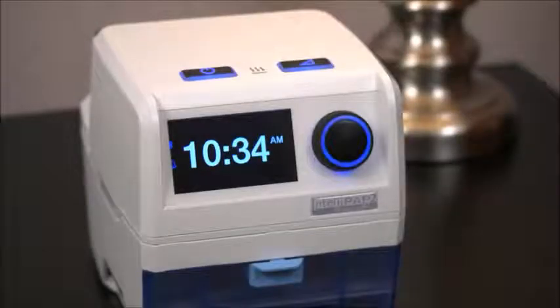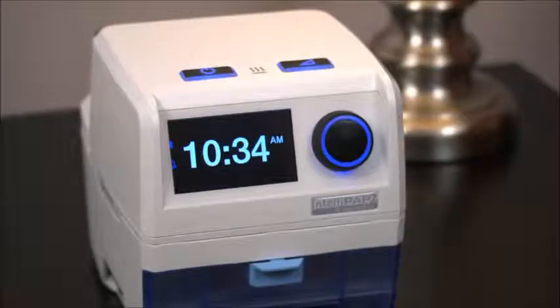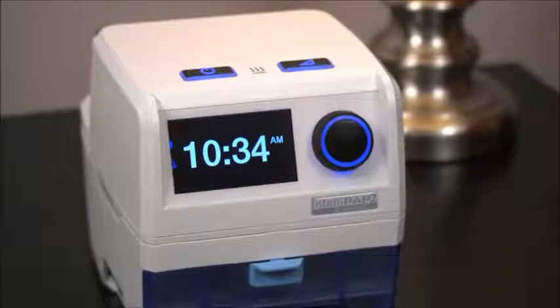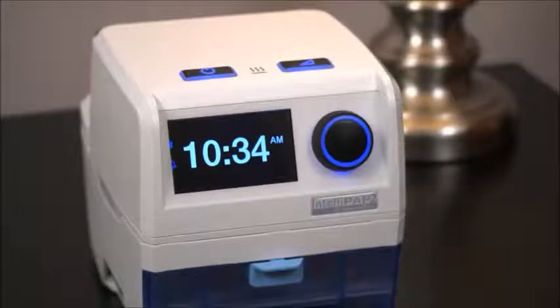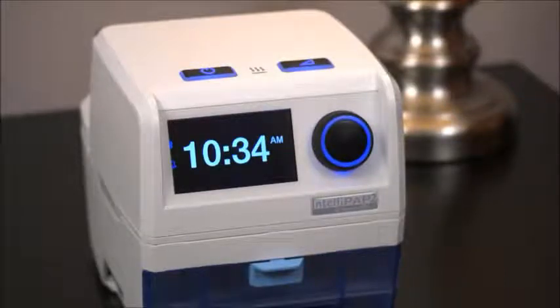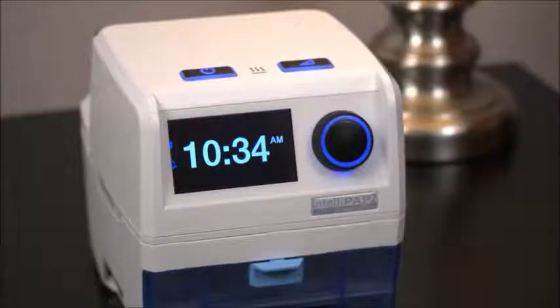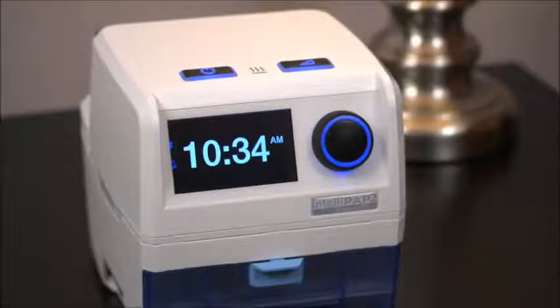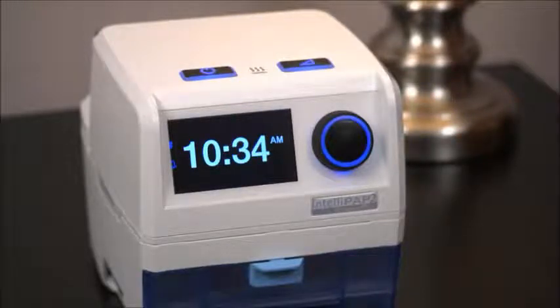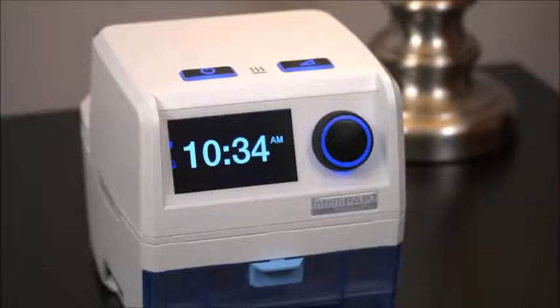SmartCode data sets provided in the IntelliPAP2 system offer a detailed look at your therapy through an encrypted code. The decrypted data includes information required by many insurers to continue coverage of your equipment. Your provider will contact you for this data set if required by your insurer.